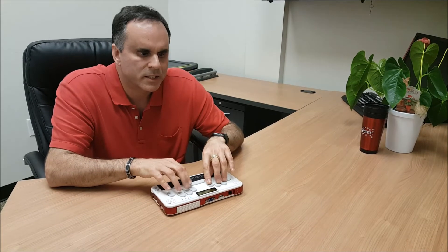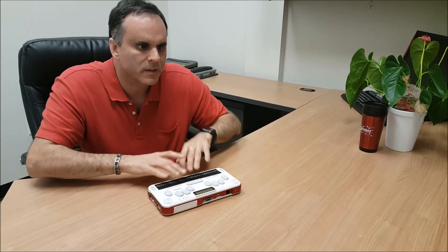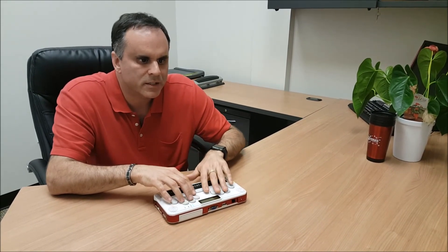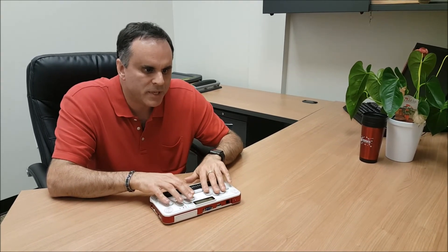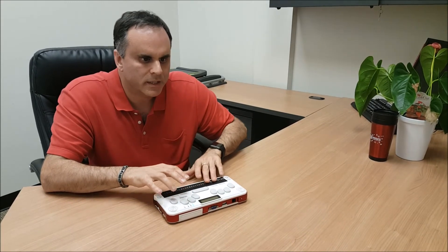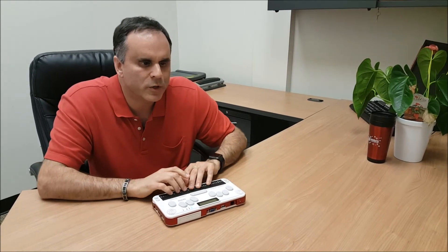So now I'm going to end recording the macro — it's the same keystrokes, Function Key 2 with the letter R. It gives me an edit box and asks me to name my macro. I'm going to call this 'DP Journal.' Enter. Save completed. So now I have created a macro called DP Journal.